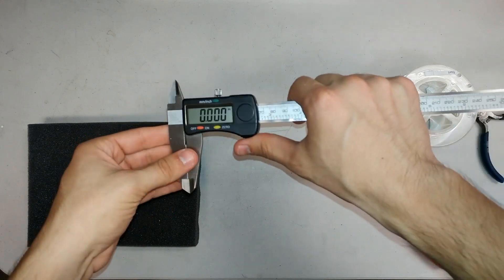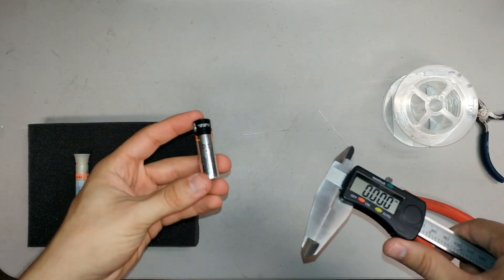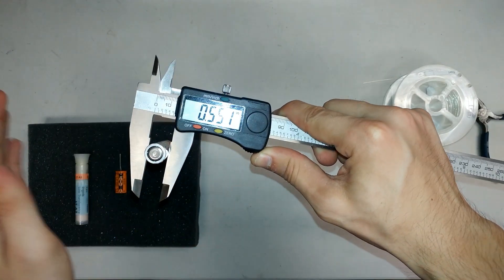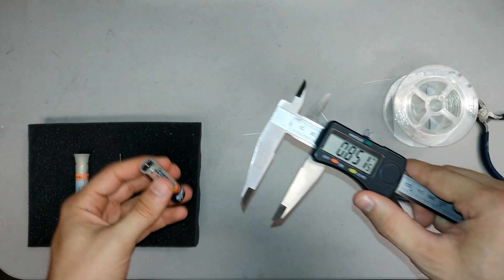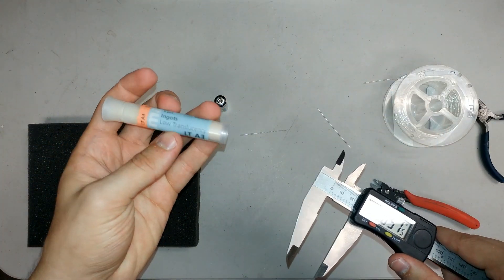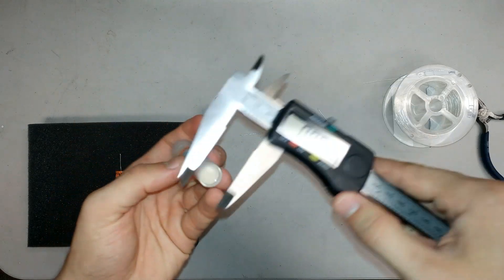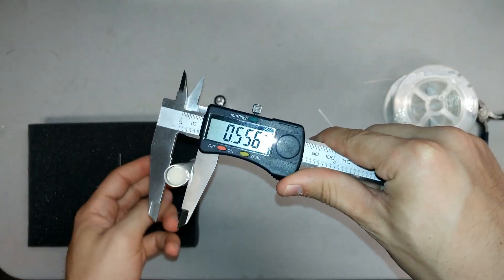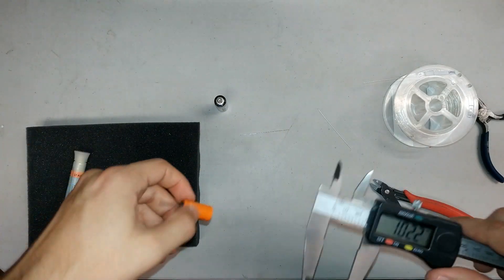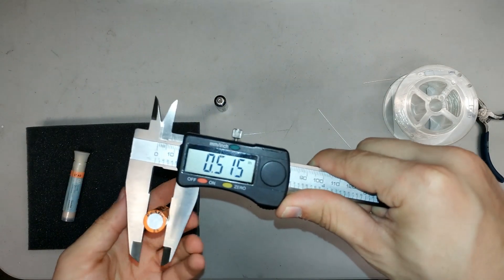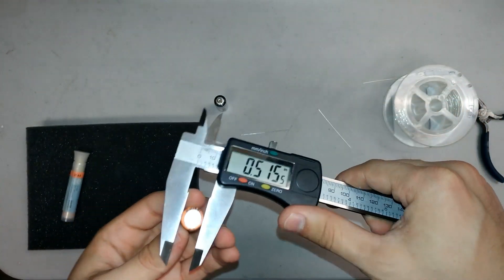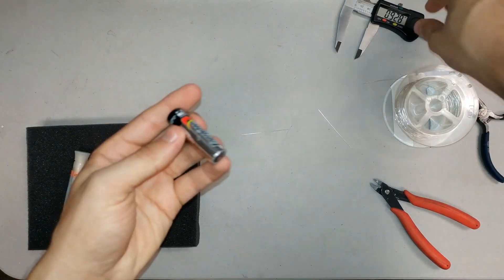The next step is to shape your silver wire. In this clip, I show the different diameters of objects that you may have laying around your office that would work for this step. The most common is a battery. It's roughly .55 inches in diameter, which is just fine. Another thing, if you use pressing ingots, if you have an Ivoclar E-Max pressing tube, it's roughly .55 as well. The thing that we use the most of is this capacitor right here, which is .51, which is a little smaller than the battery, but the battery and the tube of Ivoclar ingots work just fine.